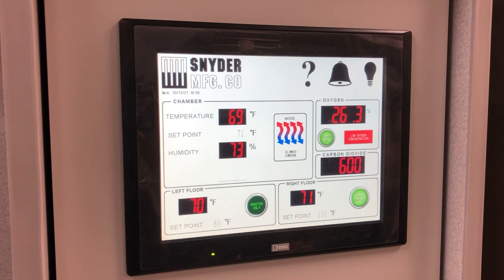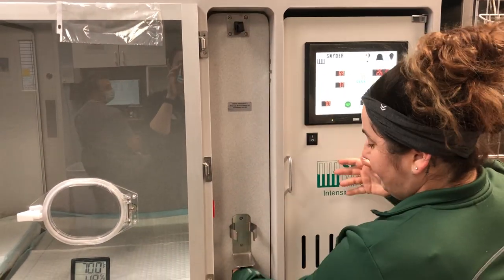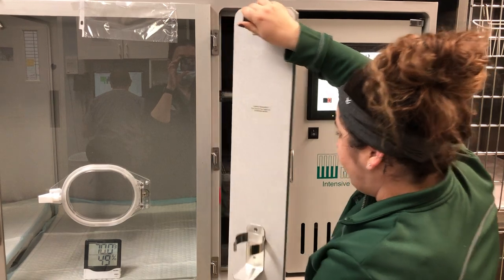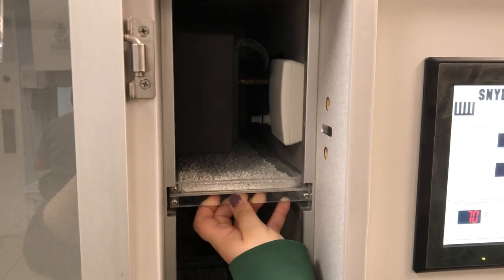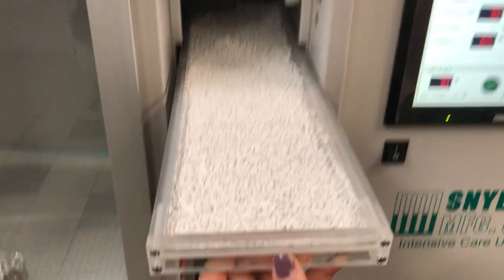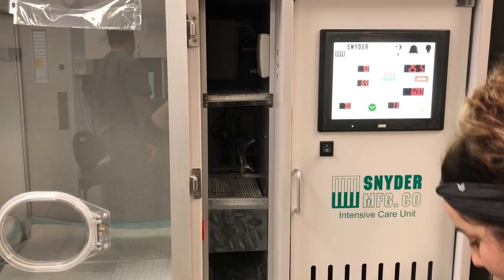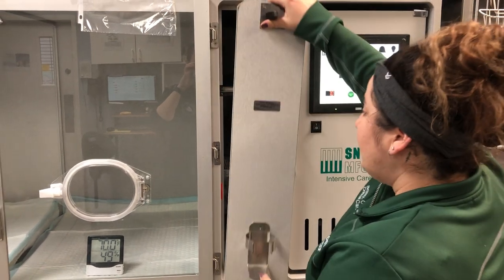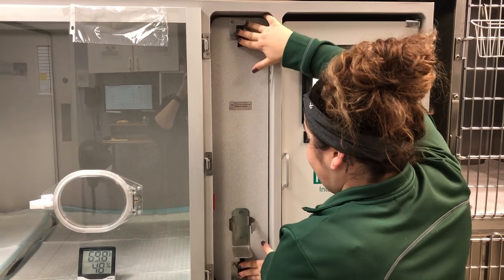If your patient needs the soda lime tray changed, open this chamber by popping up the latches, turning them, and the door will come off. The soda lime tray is located right inside. It should only be two to three granules thick and helps filter the waste gases from the unit. If that area is dirty or dusty, you can use keyboard cleaner or compressed air to blow it off. Once done, twist and then lock the door back.